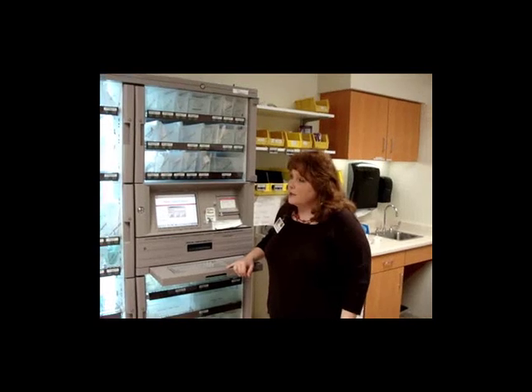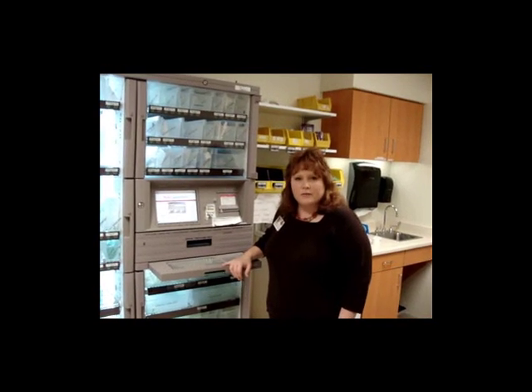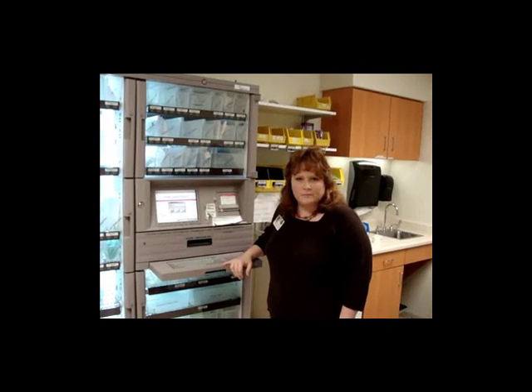Hi, this is a Pyxis supply cabinet. Here at St. Francis, we've chosen to automate some of our supply processes to, number one, provide nursing with a steady stream of supplies and to also alert materials when you need things for your unit.